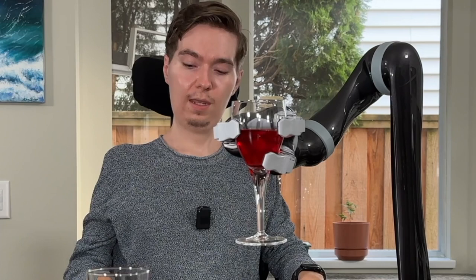What drinking mode does is combine a couple of motions to make the process of drinking a little bit easier. I'm going to turn the hand so you can see what the actual motion is like. Now in drinking mode, I'm going to rotate the wrist, but it's going to behave a little bit differently — you can see it's doing a more natural hand movement. It's both rotating and lifting at the same time, and this is going to work a lot better if you're drinking straight from your cup.